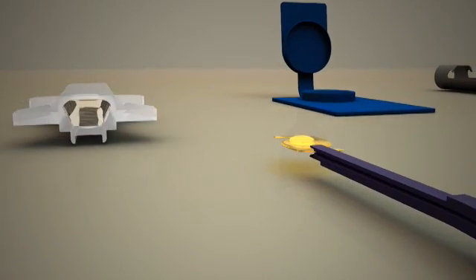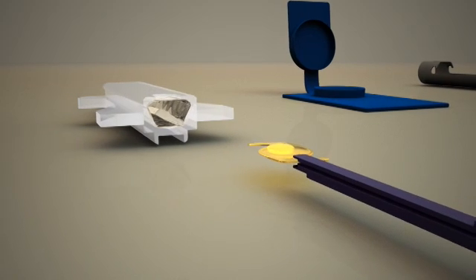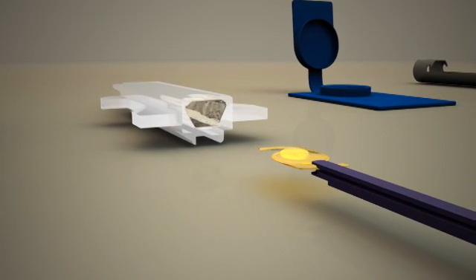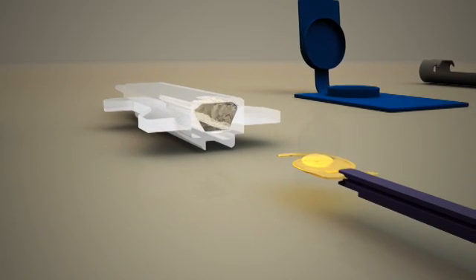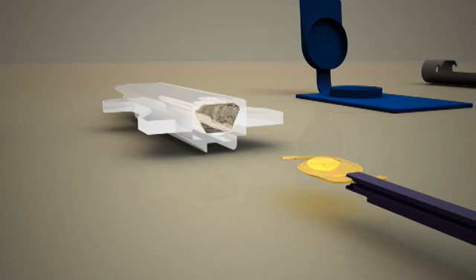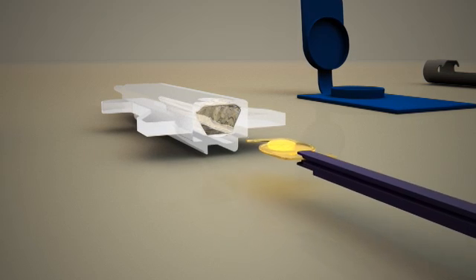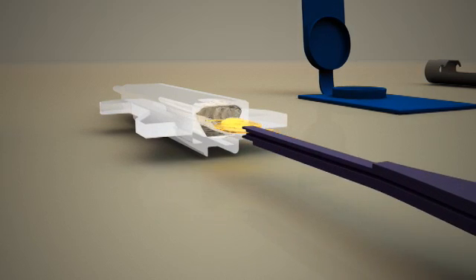With the lens oriented according to the etching on the top surface of the cartridge, insert the lens until the optic is fully inside the cartridge.